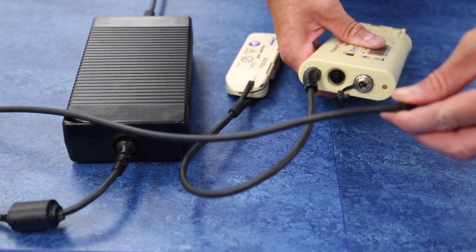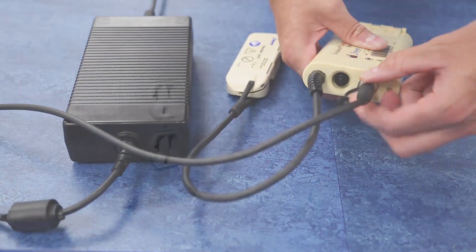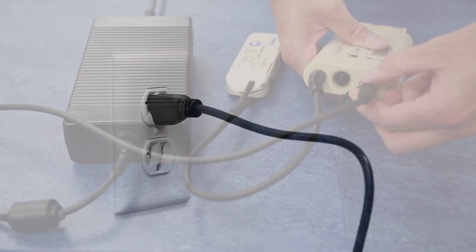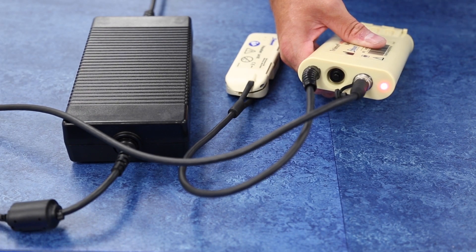To operate this system on AC power, connect the AC-DC power supply to the AC adapter on the bottom of the battery housing, and then connect the AC-DC power supply to the power source. The on and off switch controls power to the heater unit from either the battery pack or the AC-DC power supply. When the AC-DC is disconnected, power will revert back to normal battery operation.